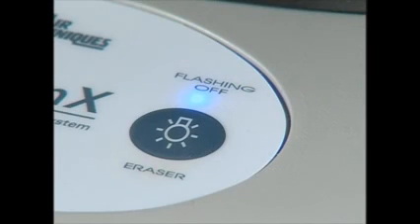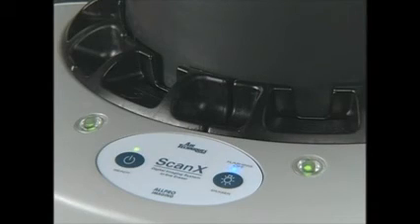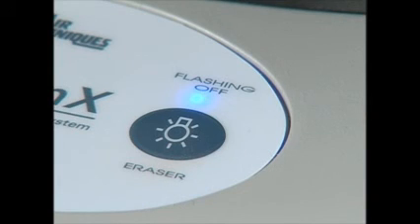The eraser switch on the right controls the inline erase function. There may be times when you don't want the ScanX to automatically erase a plate when it's finished scanning. When the blue LED is illuminated, the erase function is activated. Press the right side switch once, and the blue LED will flash, meaning the erase function is disabled.